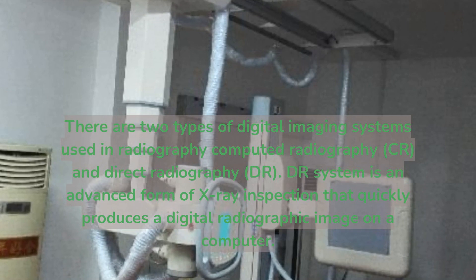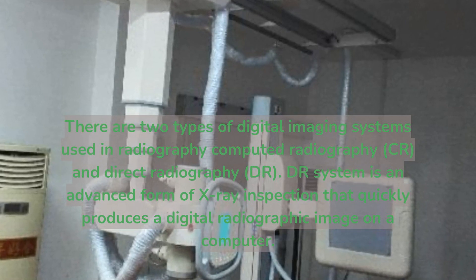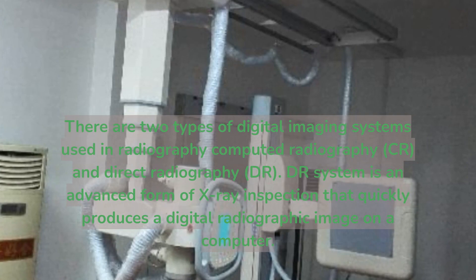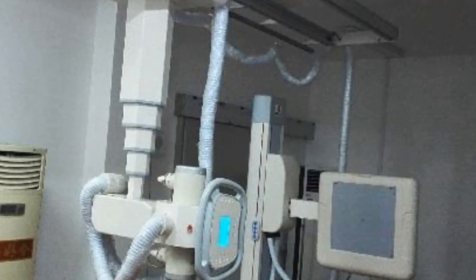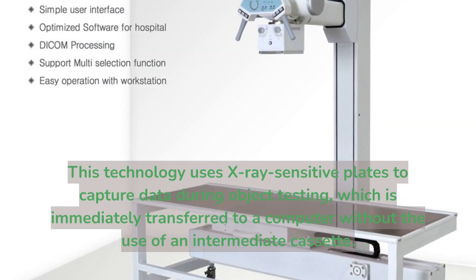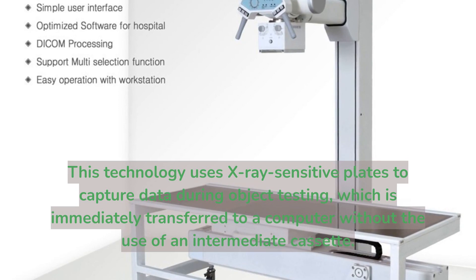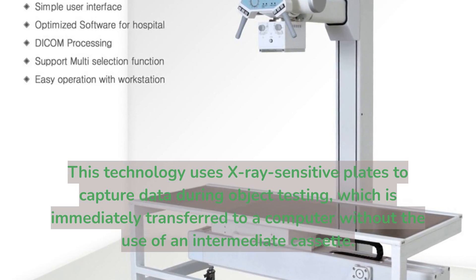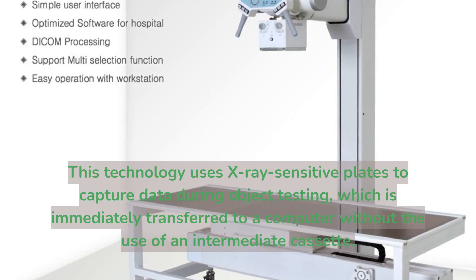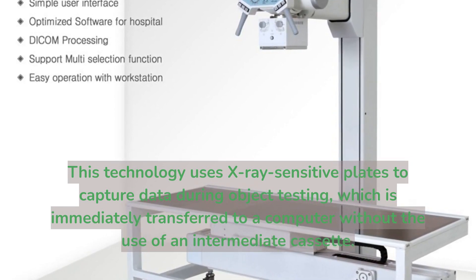DR system is an advanced form of x-ray inspection that quickly produces a digital radiographic image on a computer. This technology uses x-ray sensitive plates to capture data during object testing, which is immediately transferred to a computer without the use of an intermediate cassette.